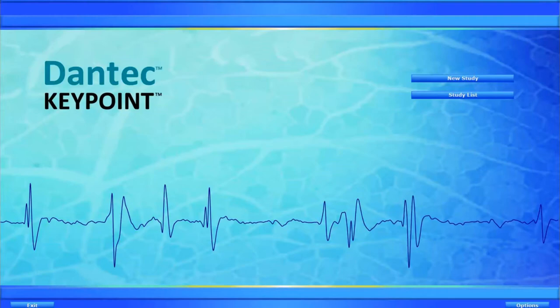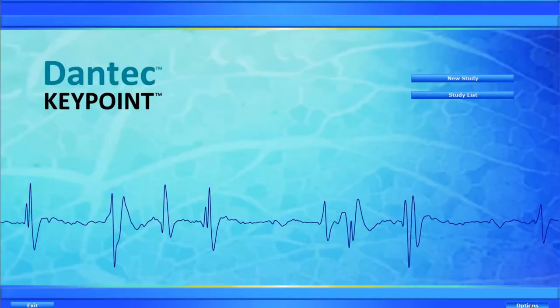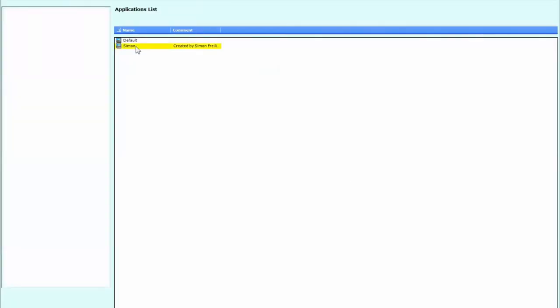And so this is effectively a hack of the H-reflex which will allow us to do this. I should also note that I have tried doing this on the Keypoint classic software, but I was unable to manipulate the H-reflex program in the same way. So this is purely a solution for Keypoint.net users. So what we're going to do is we're going to start with the options button.